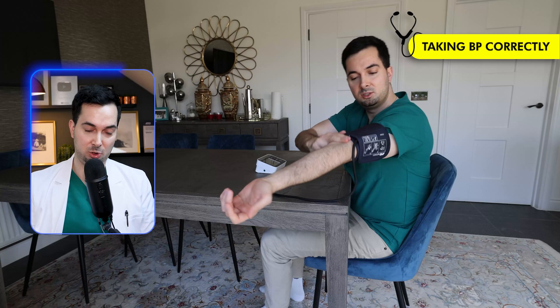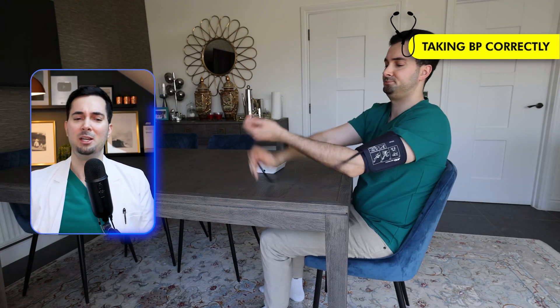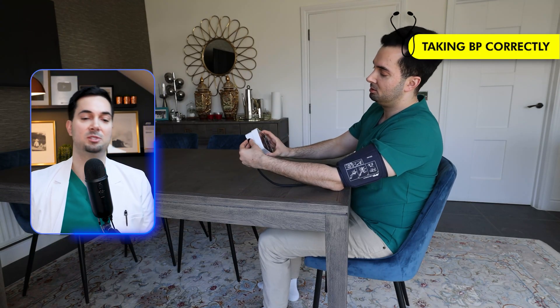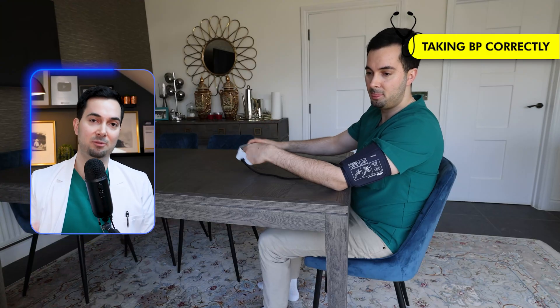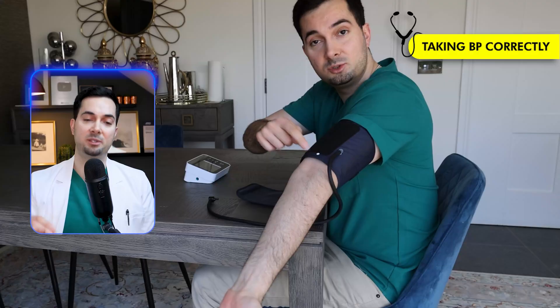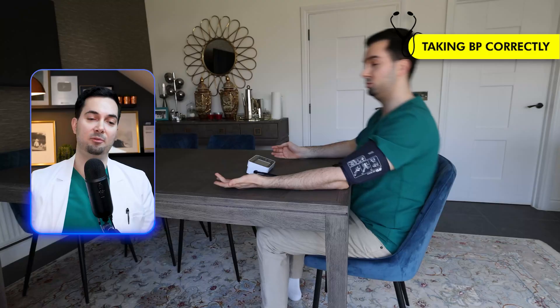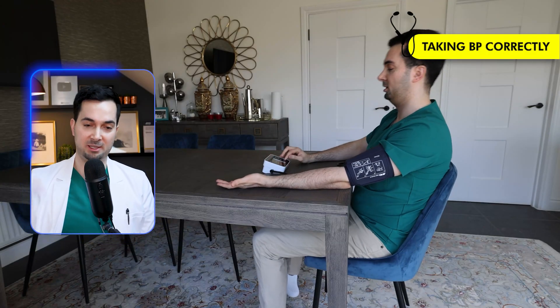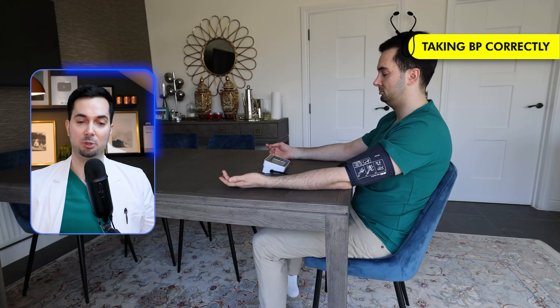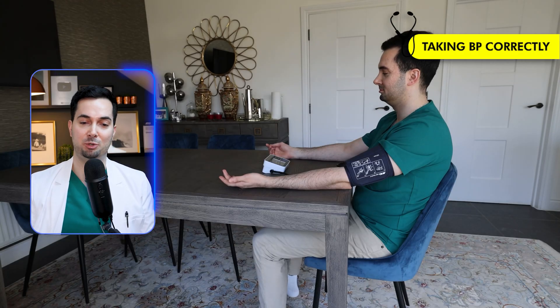The cuff position is correct — about two fingers above my elbow, snug but not too tight, just enough to fit two fingers underneath. I'm also using the correct cuff size, because the wrong cuff size can give you incorrect readings. With our A&D medical cuffs, they come with a marker aligned correctly with my middle finger for perfect placement. When ready, I click start — arm supported, not moving, not chewing, not talking, not blocking the tube. This is the gold standard for accurate blood pressure readings.